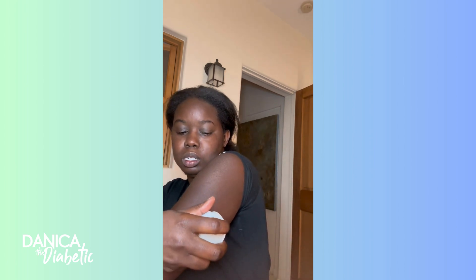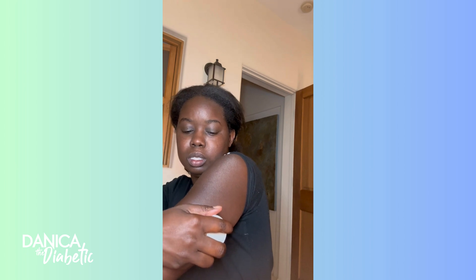As you see here, I am putting on my G7. I had a G6 on at this time, so I did it so I could have some overlap with the sensor. Simple process, just like the G7s, you are able to just quickly pop it in, squeeze it. It's on your arm. I love it.